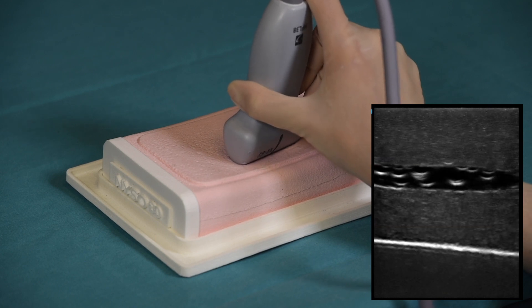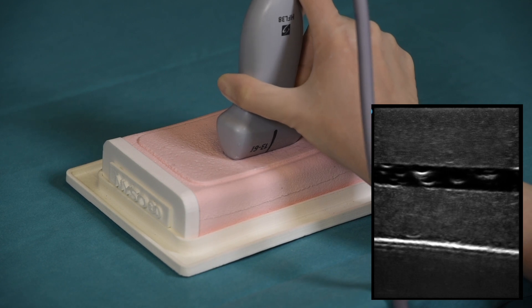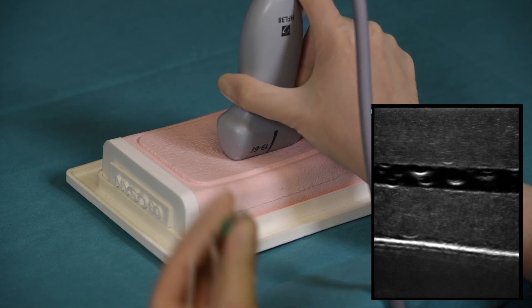In particular, switching from cross-sectional to longitudinal view is an important ultrasonographic skill that can be practiced using this simulator.